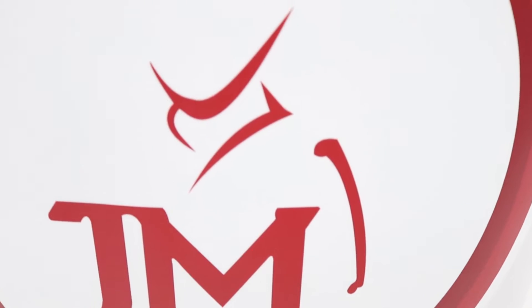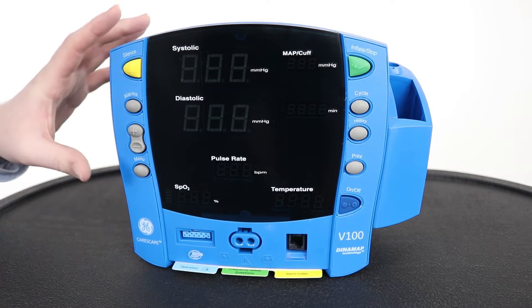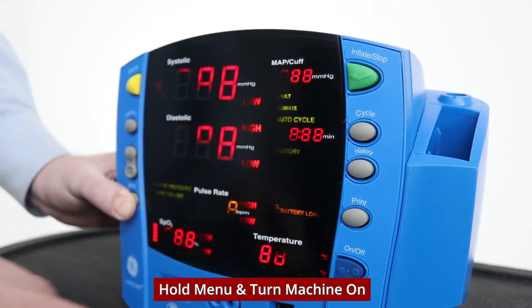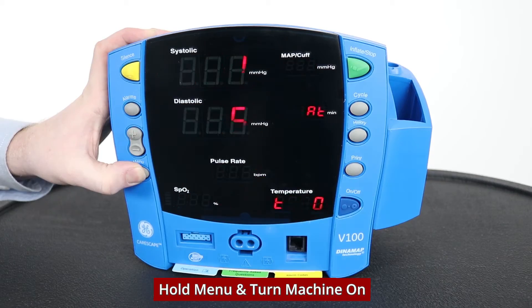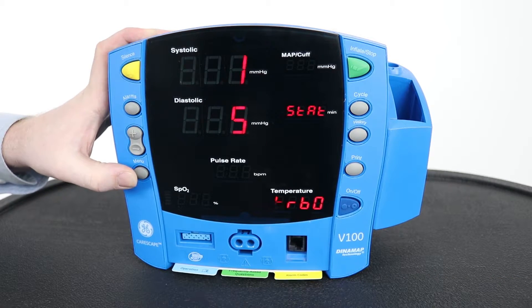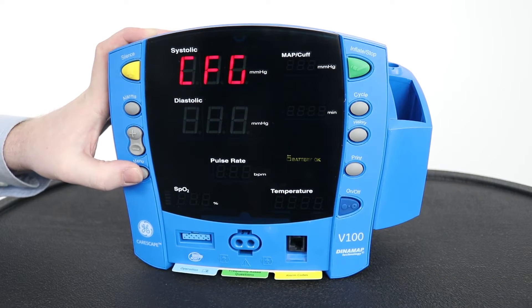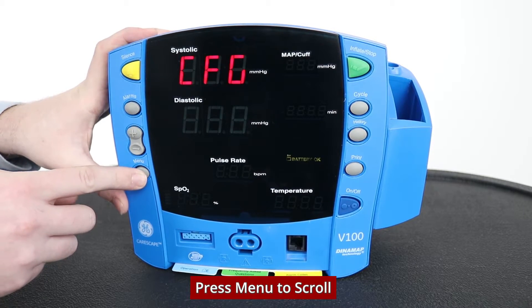Start with the monitor in the off position and to access the service menu, hold down menu while you turn the machine on. Here we can see a whole bunch of different screens and we can scroll through them by pressing the menu button.